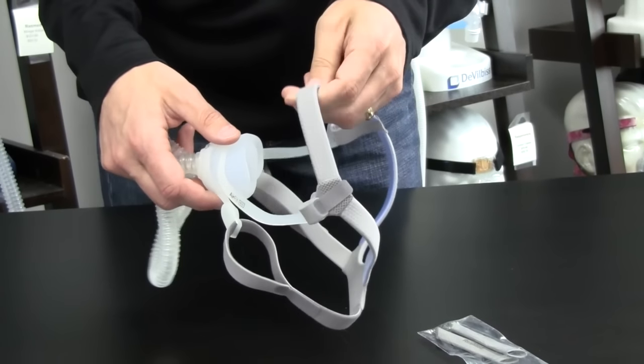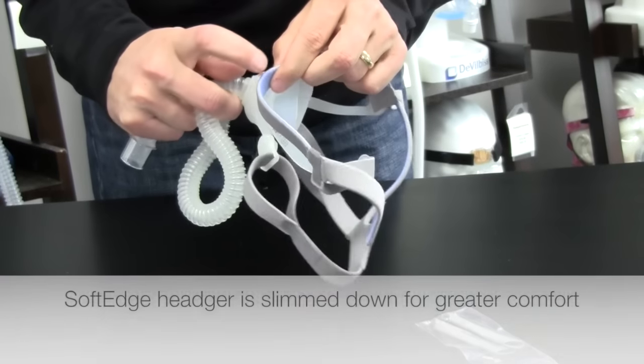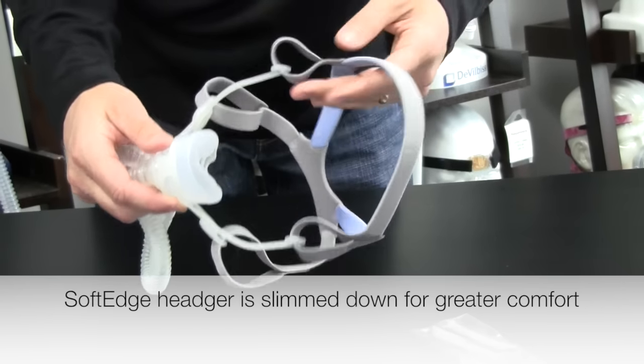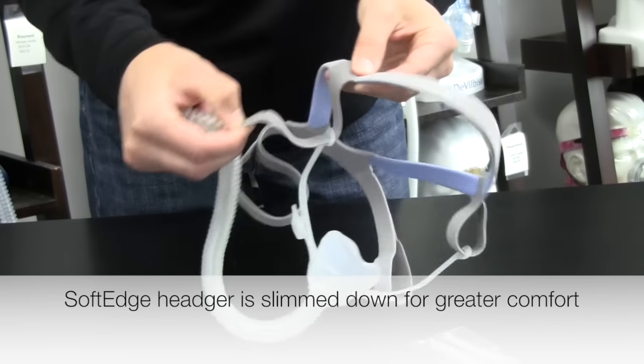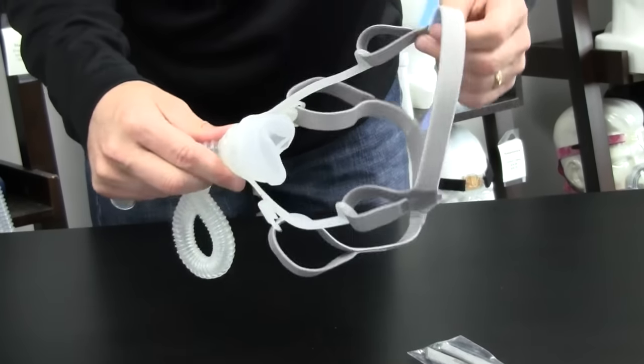This is ResMed's new soft edge headgear. Very soft. The stitching is on the inside, so it's not going to snag on anything. It uses Velcro. Headgear is available in a couple different sizes.